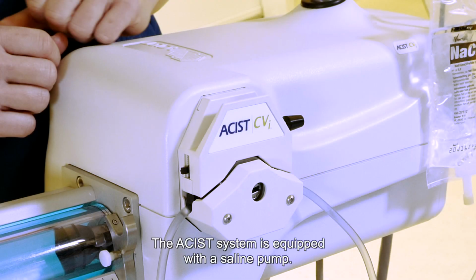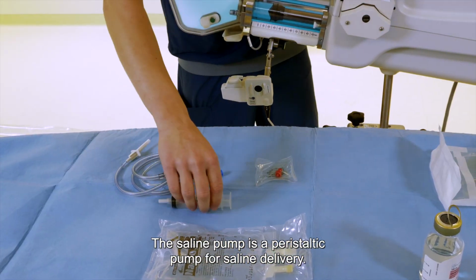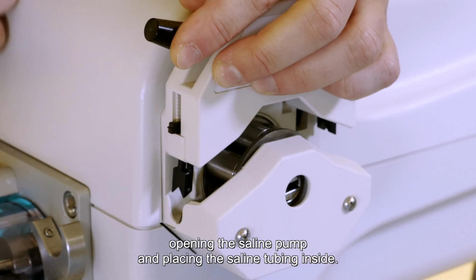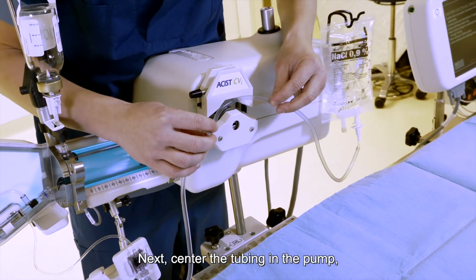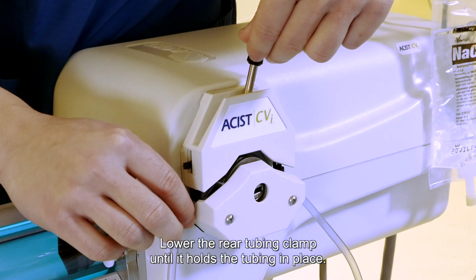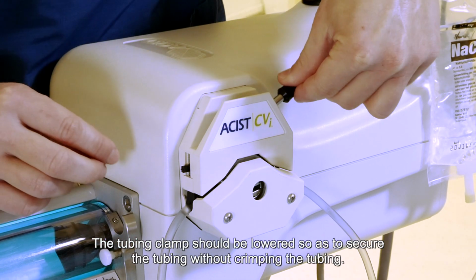The ACIST system is equipped with the Saline Pump. The Saline Pump is a peristaltic pump for saline delivery. The tubing should be installed correctly by opening the Saline Pump and placing the saline tubing inside. Next, center the tubing in the pump so that equal amounts of tubing remain on either side of the pump. Lower the rear tubing clamp until it holds the tubing in place. The tubing clamp should be lowered so as to secure the tubing without crimping the tubing.